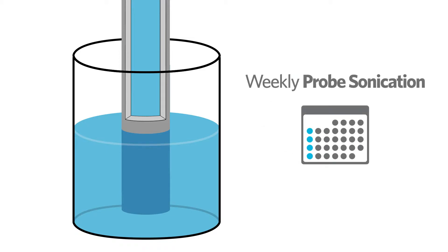It is important to clean the MAGPIX sample probe weekly to help keep your Luminex MAGPIX instrument in good working condition.